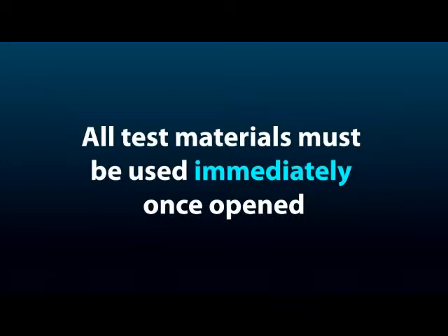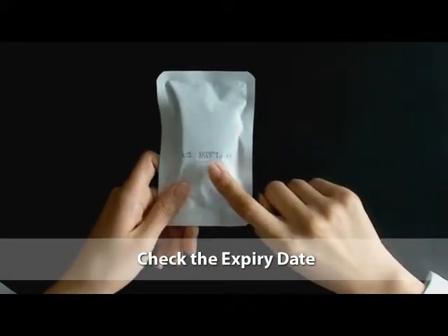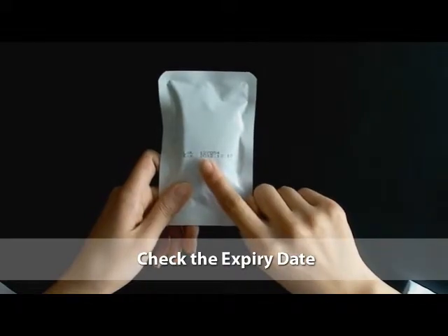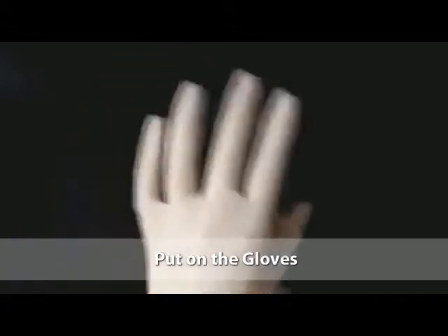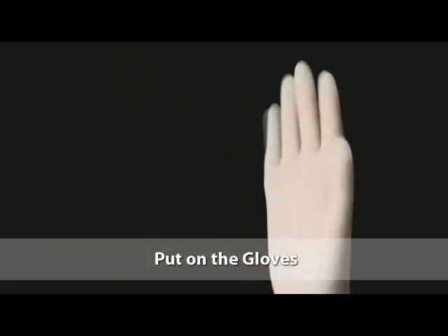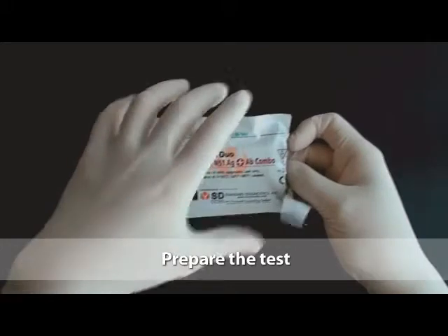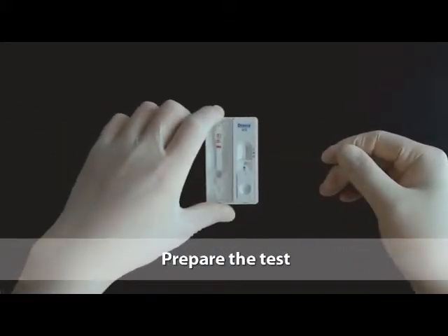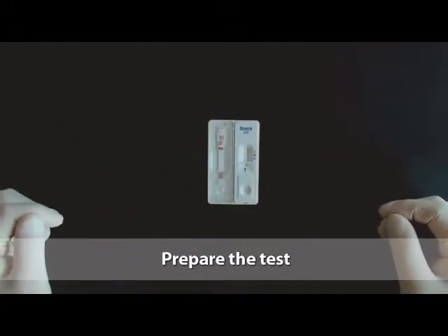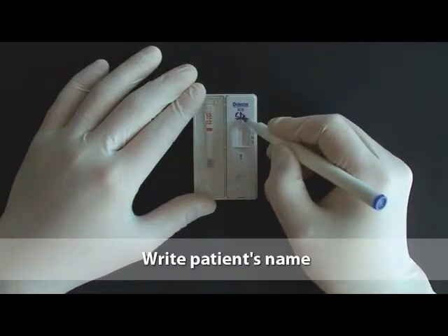Let's begin the test. Check the expiry date on the back side of the test pouch. If expiry date has passed, use another kit. Put on the gloves. Remember, use new gloves for each patient. Remove the test device from the foil pouch and place it on a flat, dry surface. Write the patient's name on the test.